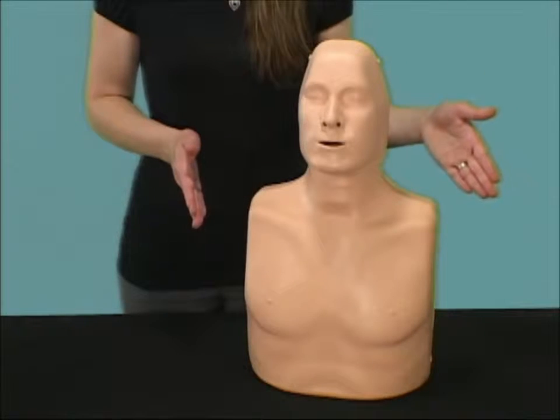Hello, today I'd like to tell you about a great new product, the PractiMan Mannequin. The PractiMan was designed to provide the most realistic simulation for BLS and AED training while being cost effective at the same time.